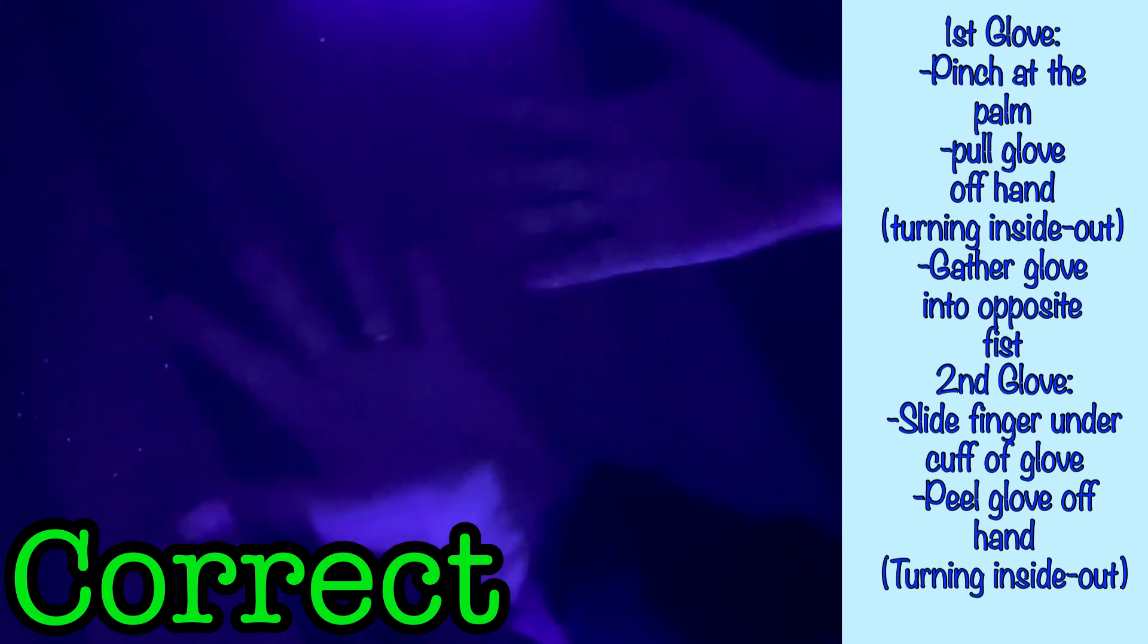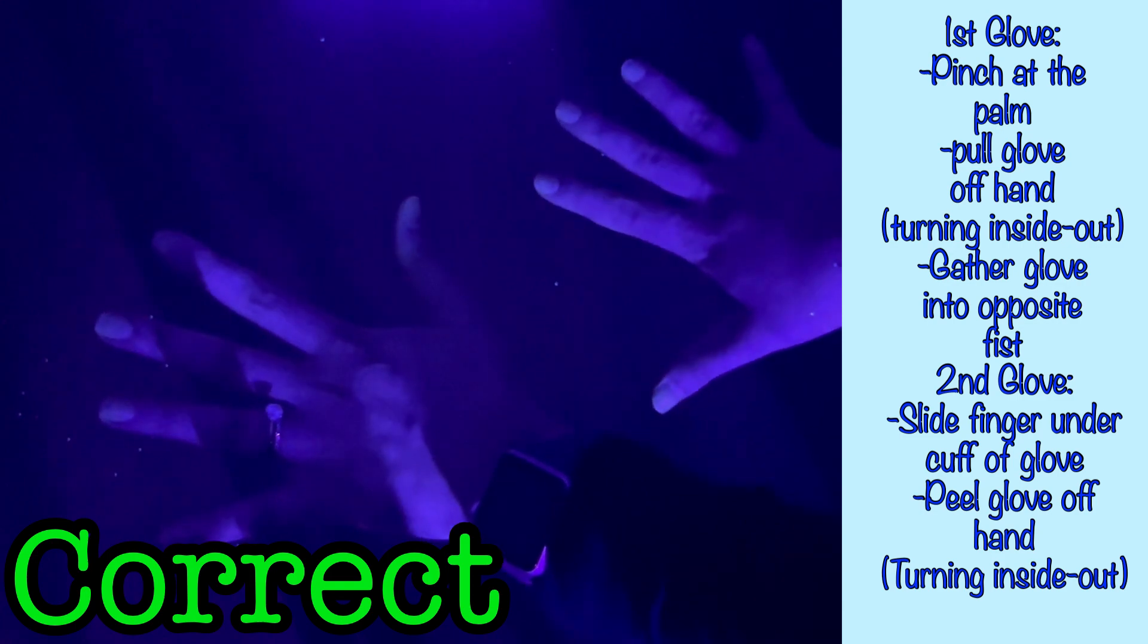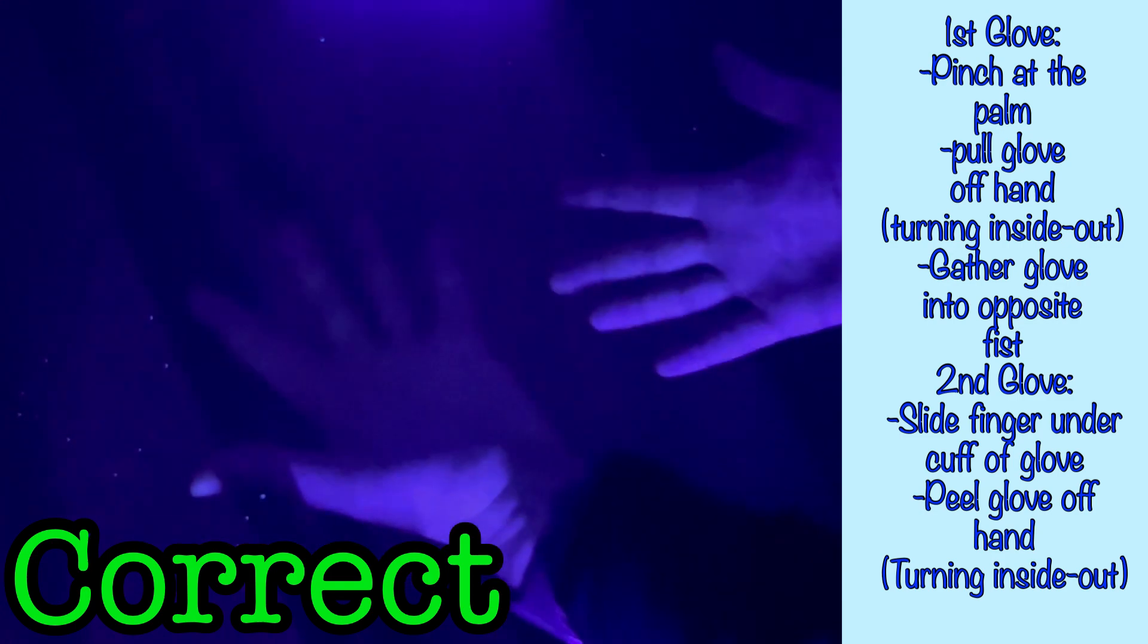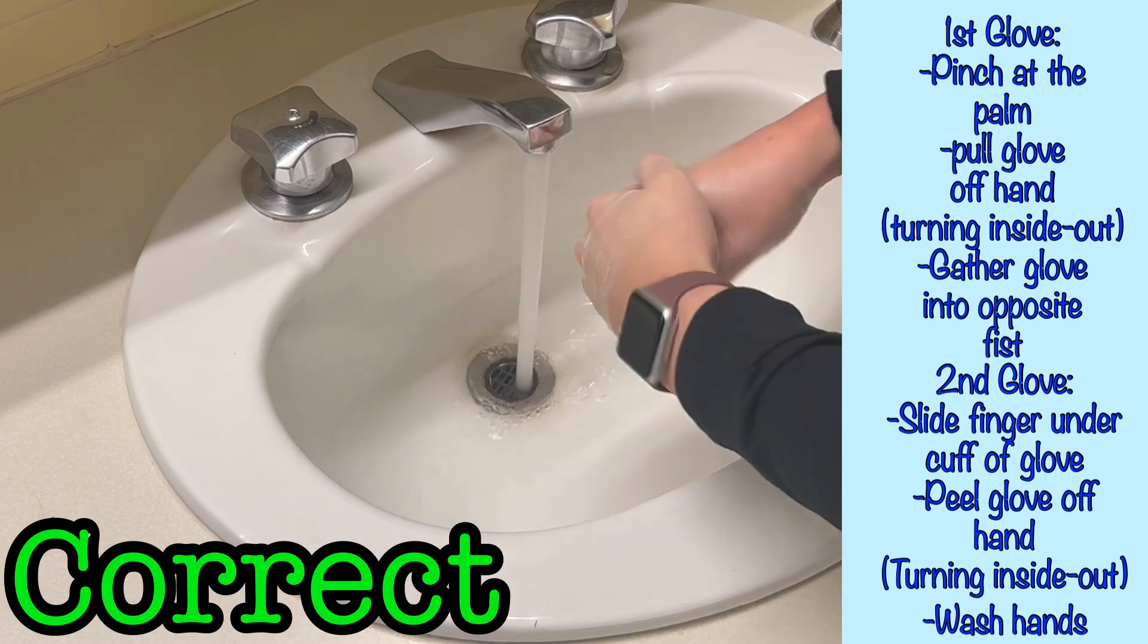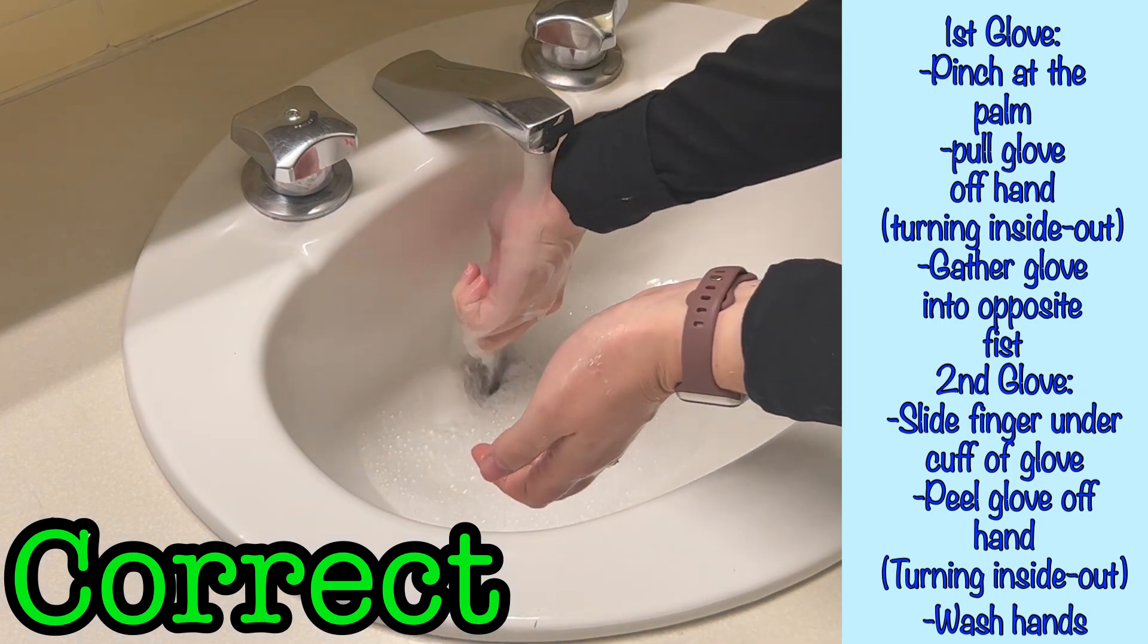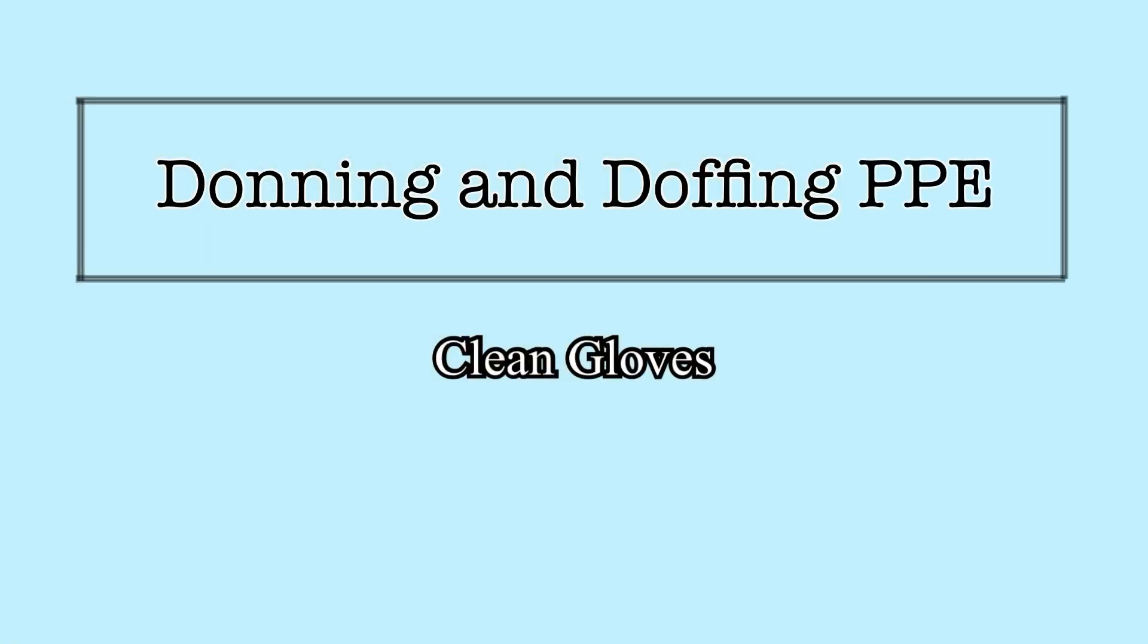When doffed properly, you will be able to avoid contaminating your hands with anything present on the outer surface of the gloves. But even when doffed perfectly, you should always be washing or disinfecting your hands following the removal of gloves. By donning and doffing gloves appropriately, you can ensure you have provided yourself with the best protection possible from this PPE.